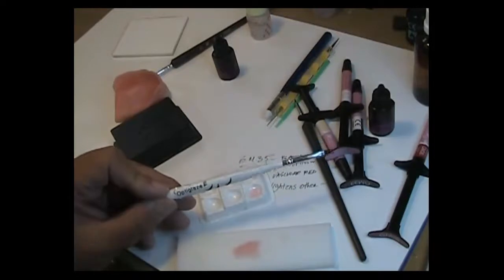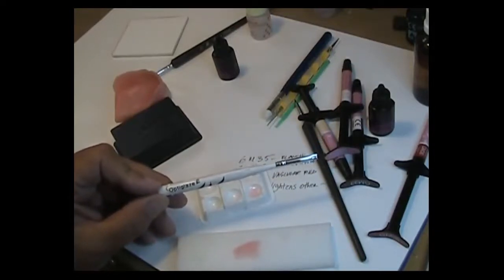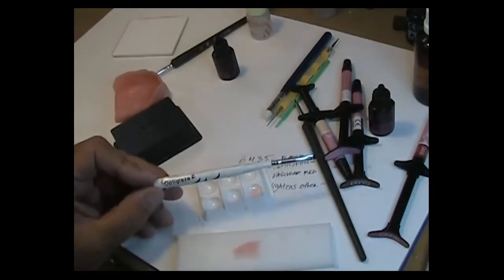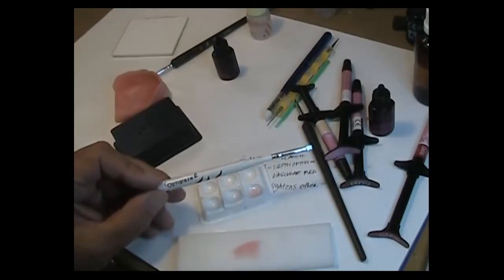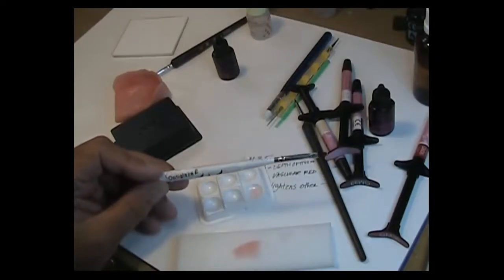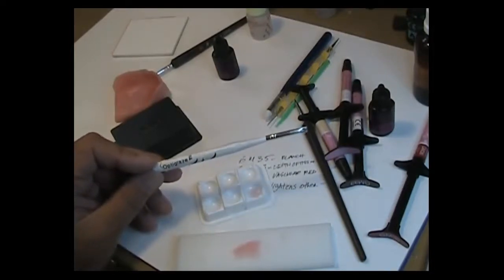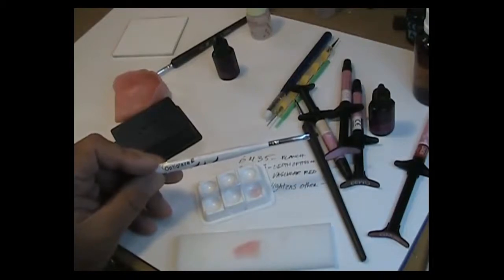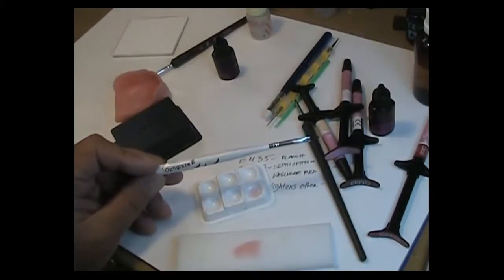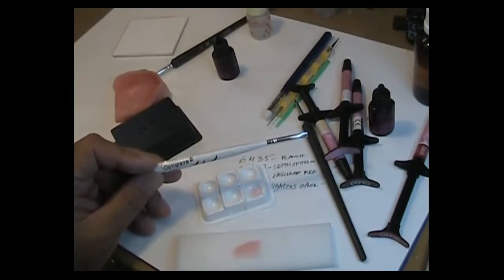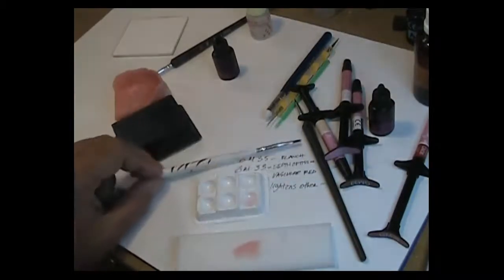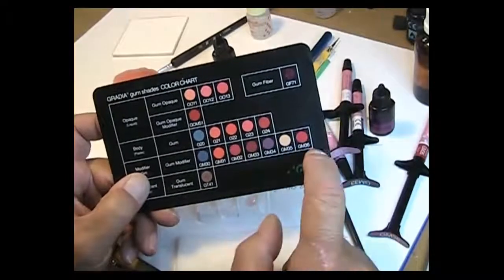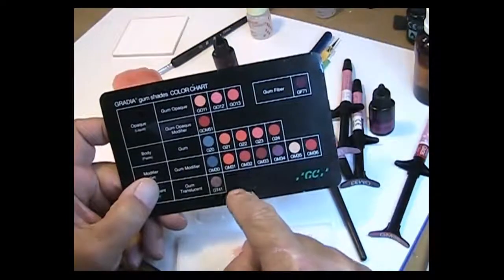So anyways, this gets you going. These are the products, basic. A couple little tips here, not real big tips but just some things to keep in mind to prevent yourself from having issues from the get-go. And then the three colors and the translucent to give you an idea of what you'll need to purchase. You know if you want to buy the whole kit that's great. A lot of people like to get in a little bit light and then increase as you go. That's the way I roll. I would prefer to get the ones that I'll need first, learn those really well, and then introduce other colors into the equation. As you can see on the card here there are several that I did not mention. The 34, the 32, the 31. There's several different shades of red and pink which can be added.